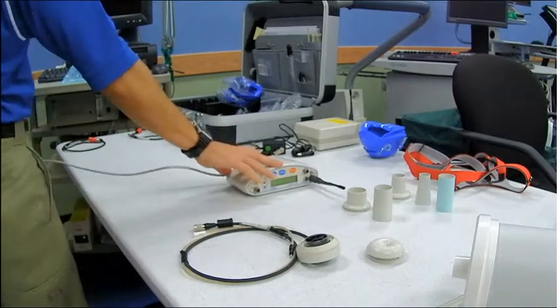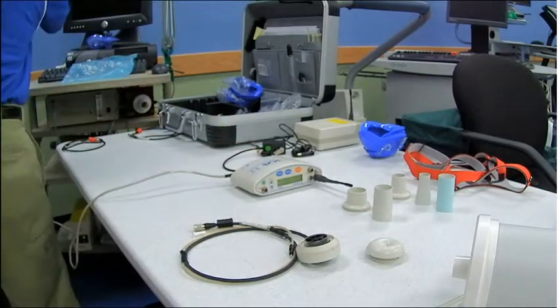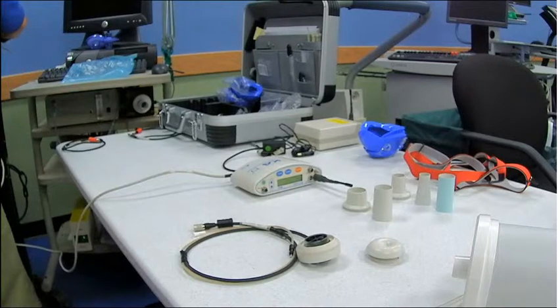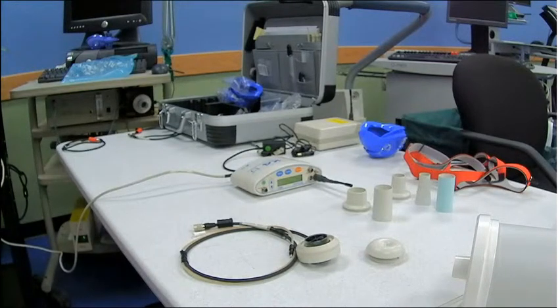And then we're going to take the Ethernet side, and you can't see it on the screen, but over here we've got the laptop like you saw earlier in the equipment video, and we'll plug it right in there.